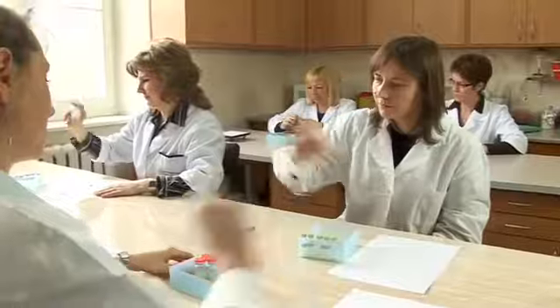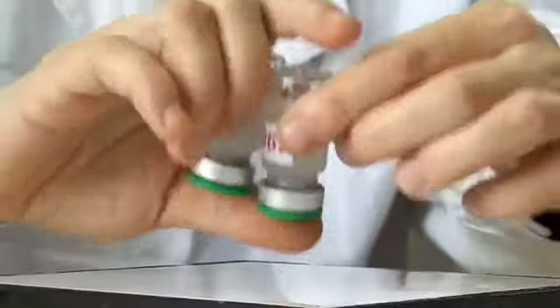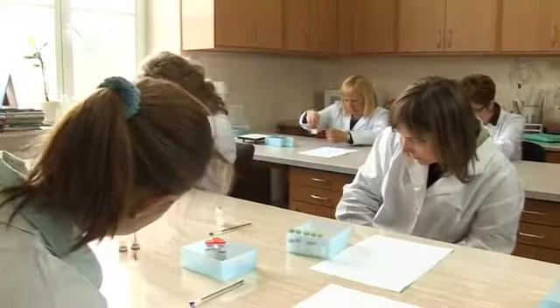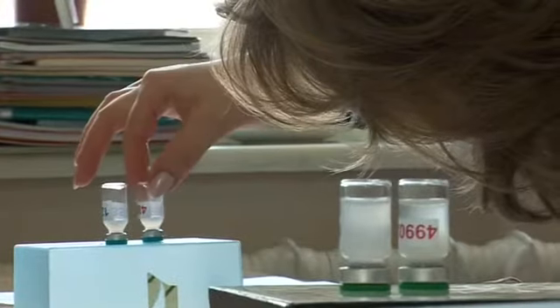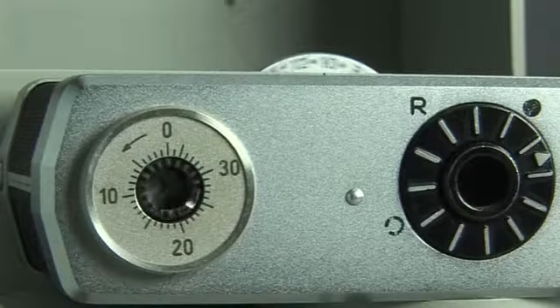When freezing is suspected, the shake test is the only test that can be performed in order to understand whether vaccines are affected by freezing and should not be used. When performed correctly, the shake test produces 100% reliable and valid results. Its sensitivity and specificity have been tested by the World Health Organization and confirmed at a 100% level against both freezing status and phase contrast microscopy.